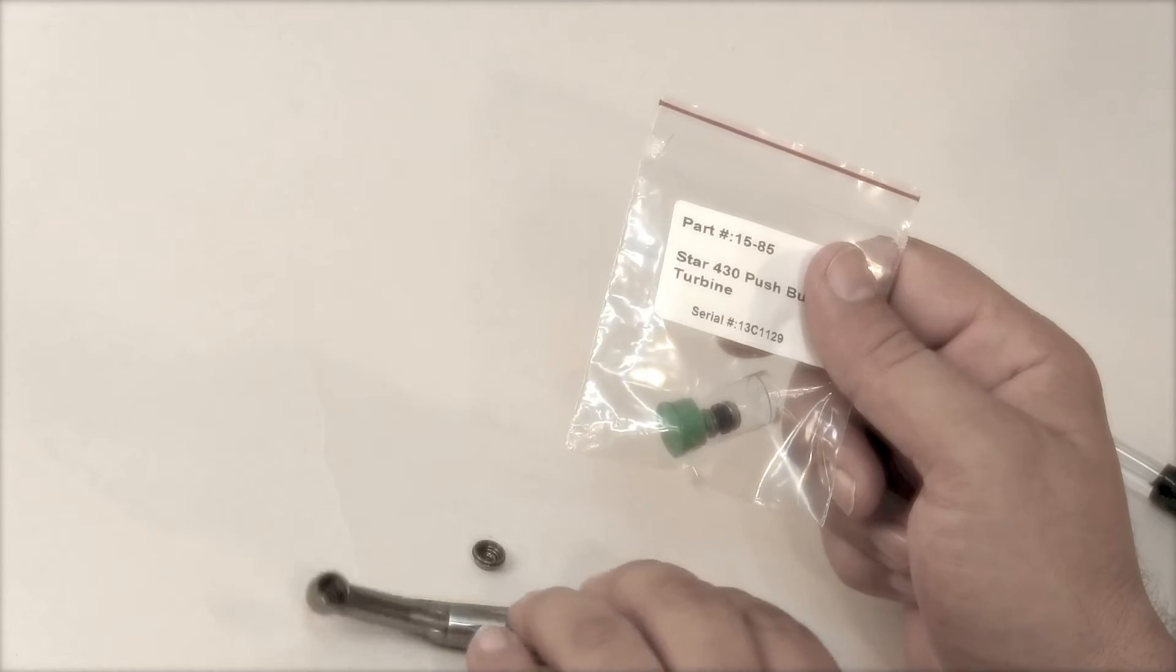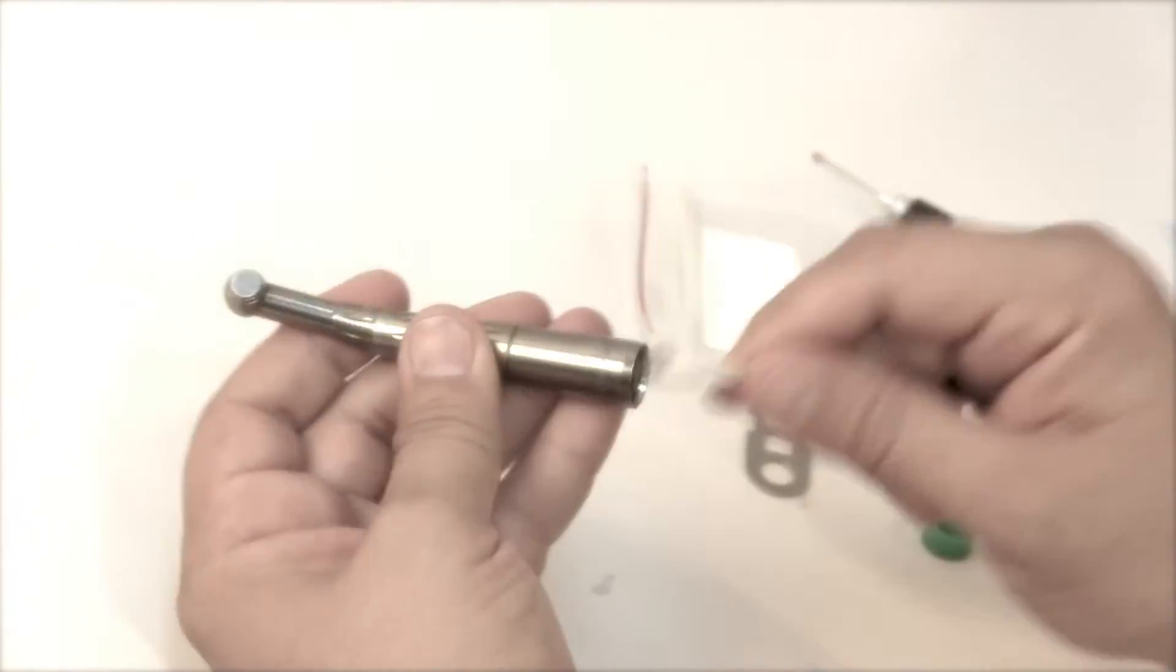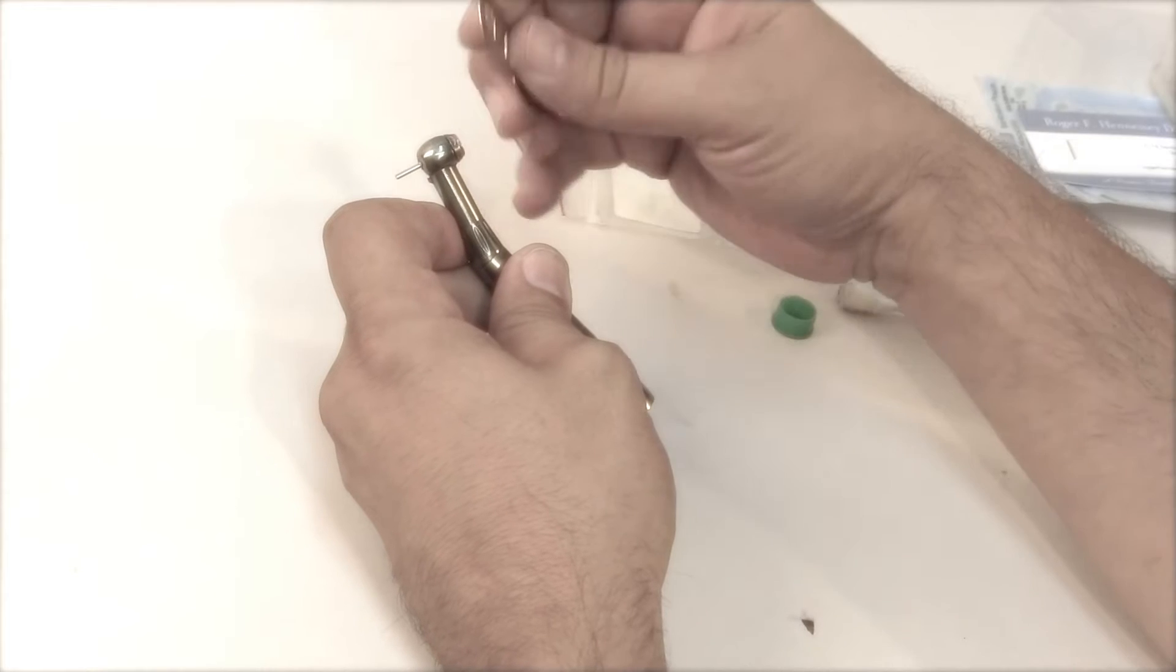In this companion to our previous turbine installation video, we'll show you how easy it is to install a Star 430 push-button turbine.